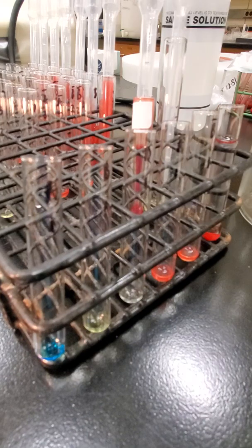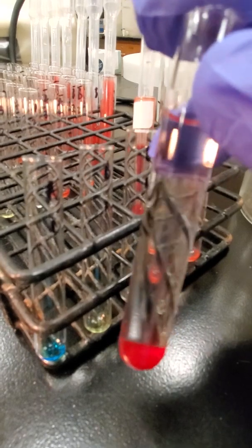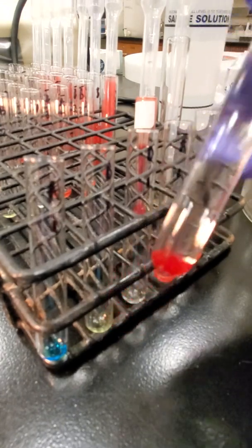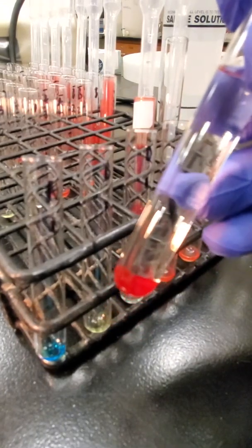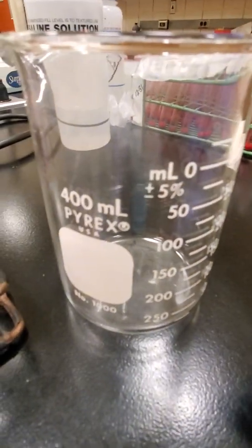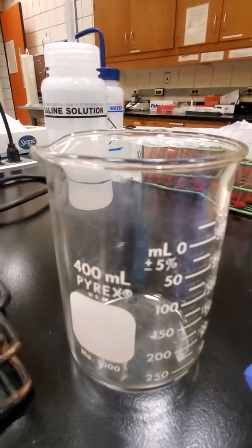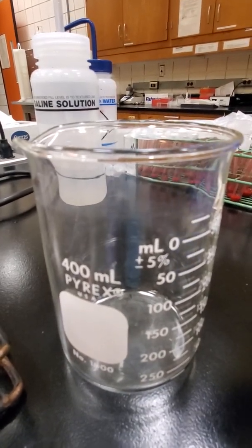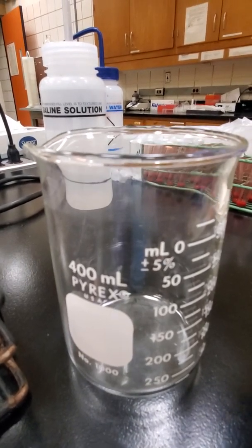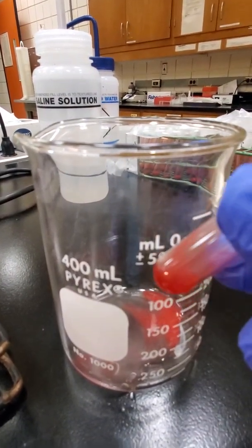Hold on 1 minute. Okay, so I just took my 3 to 5% suspension out of the centrifuge. If you notice, all that saline is on the top. It's the supernatant, and then my red cells are down at the bottom. So we don't have very many red cells in this tube. I know this is kind of scary for the first time, but I want to get rid of the supernatant. I'm just going to simply flip it upside down and dump that supernatant out, and then invert it again. And my red cells are going to stay in the bottom of my tube. Mostly.